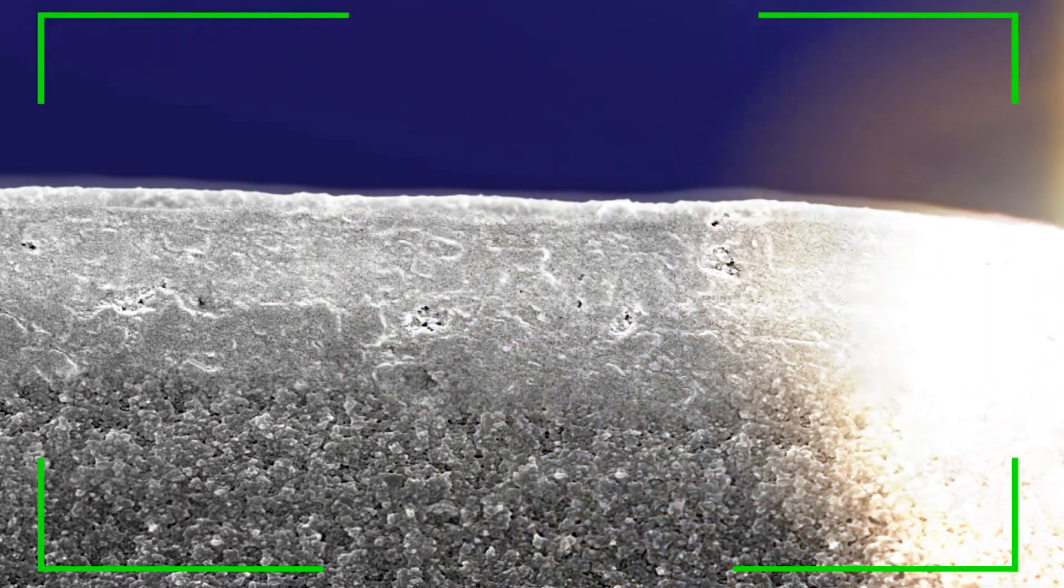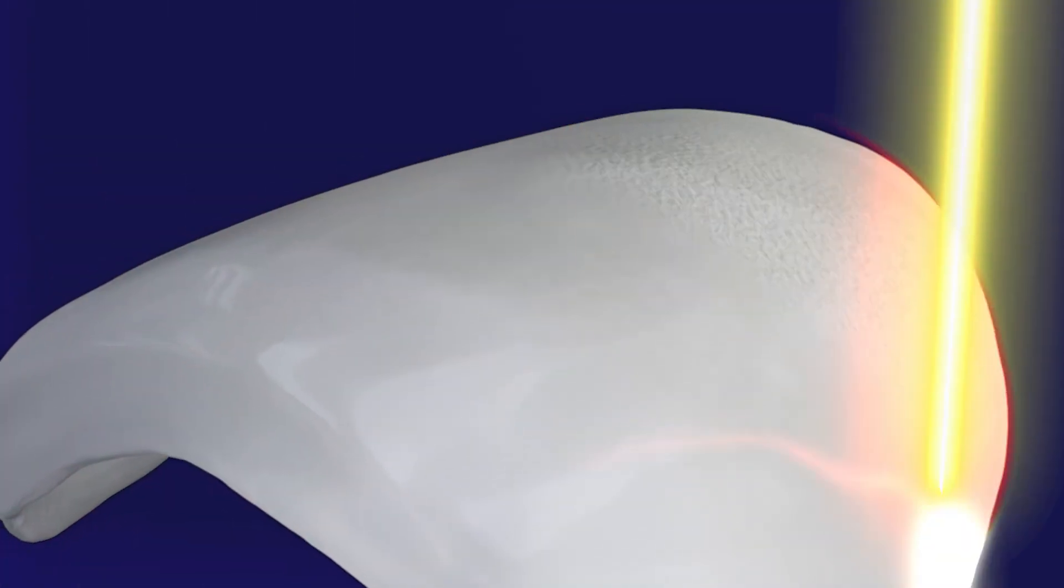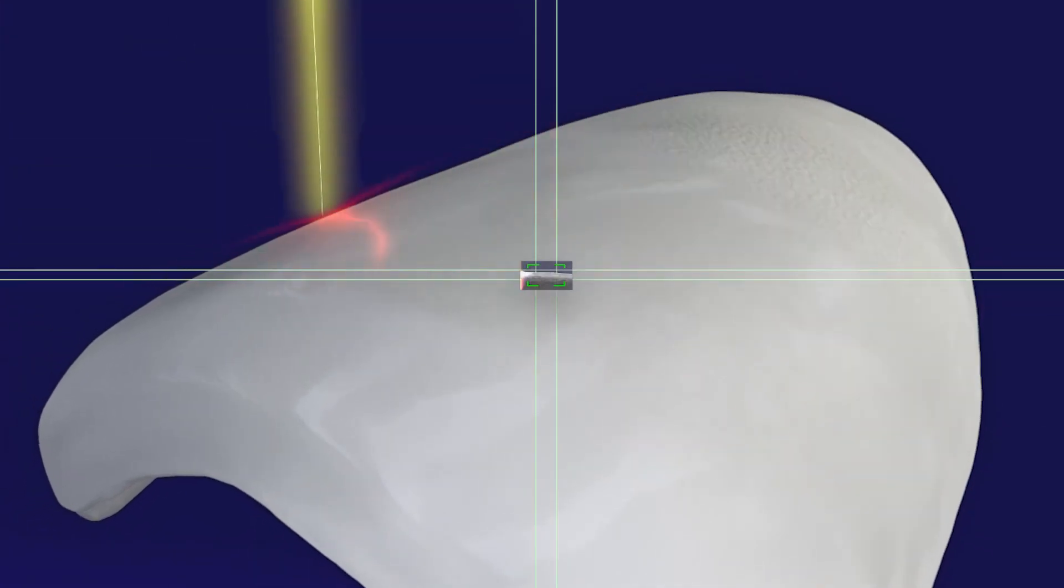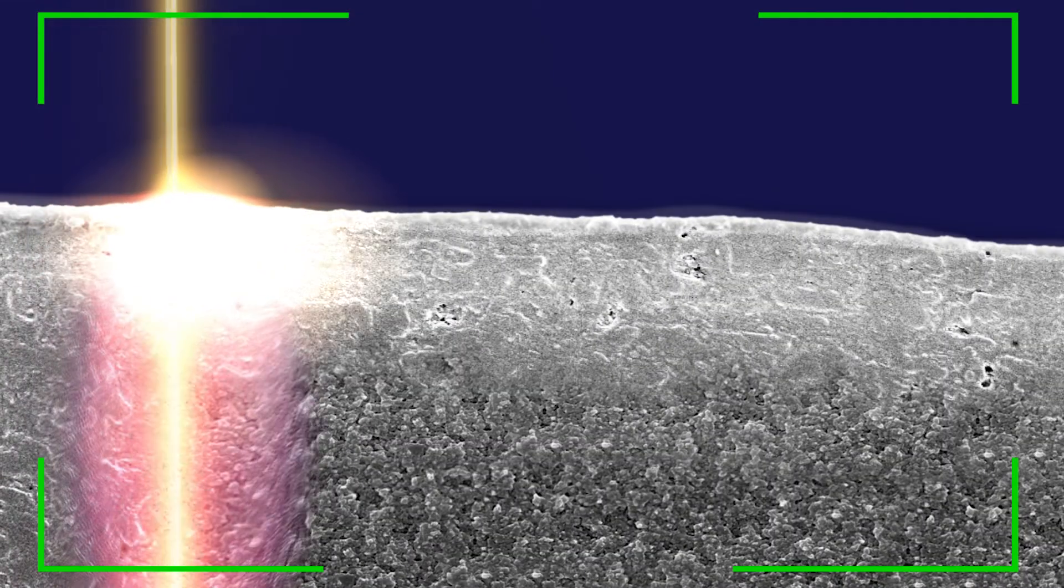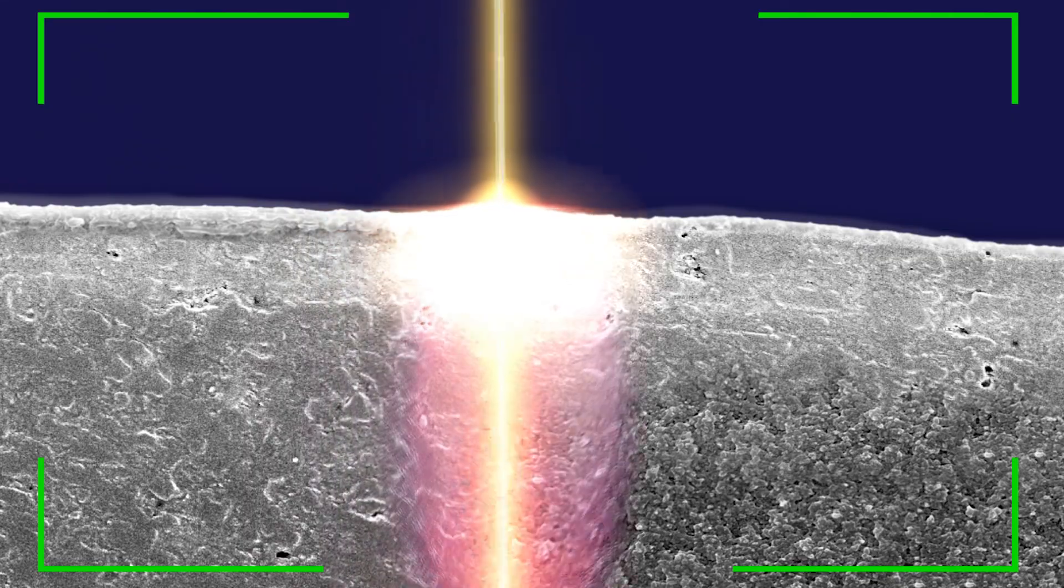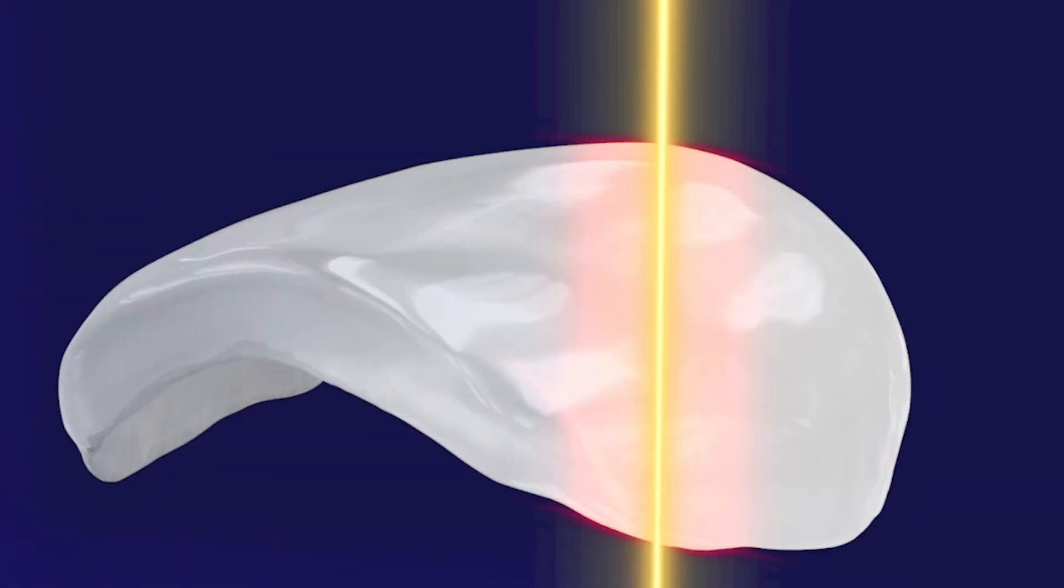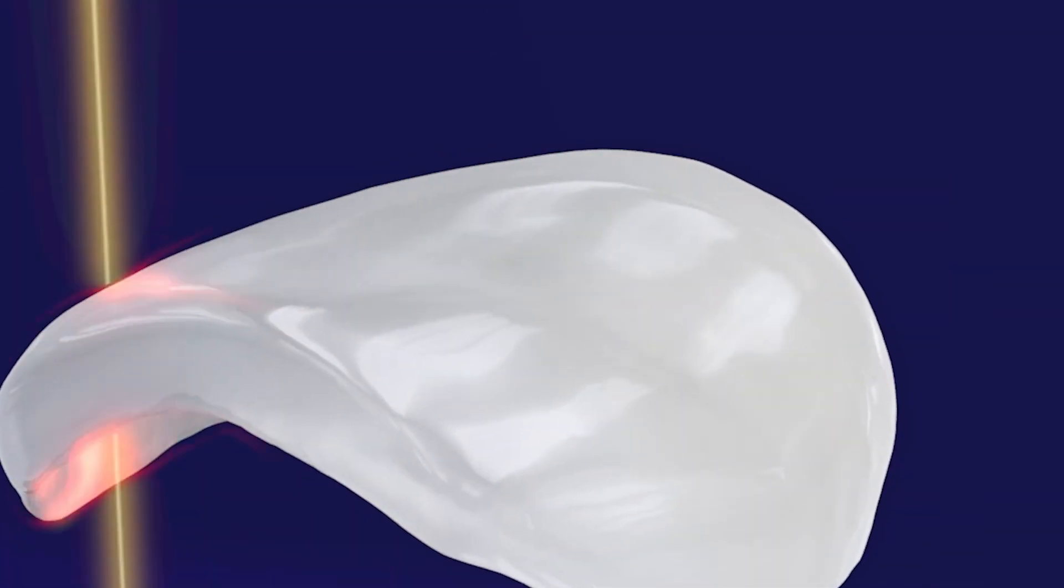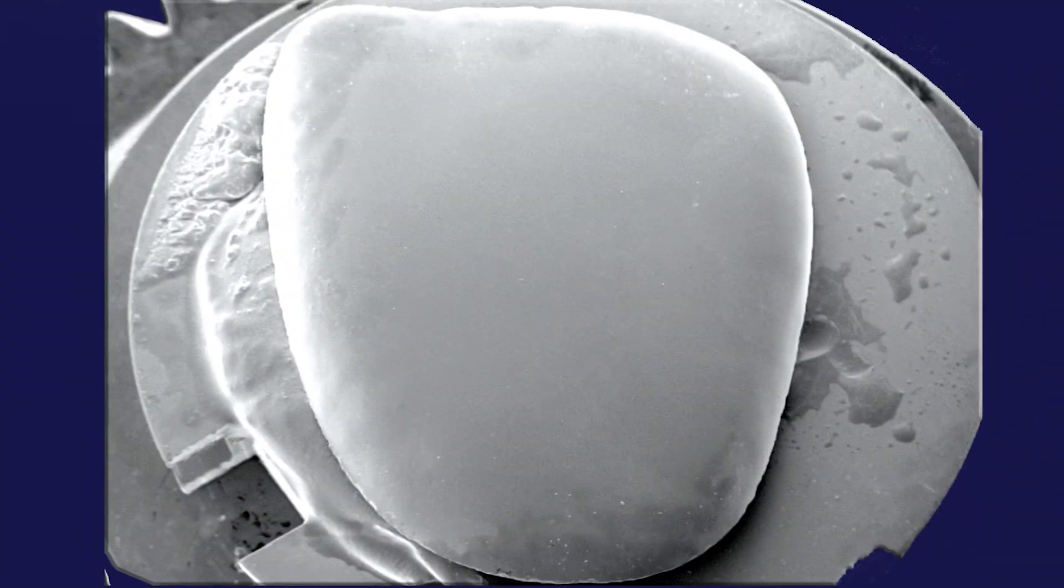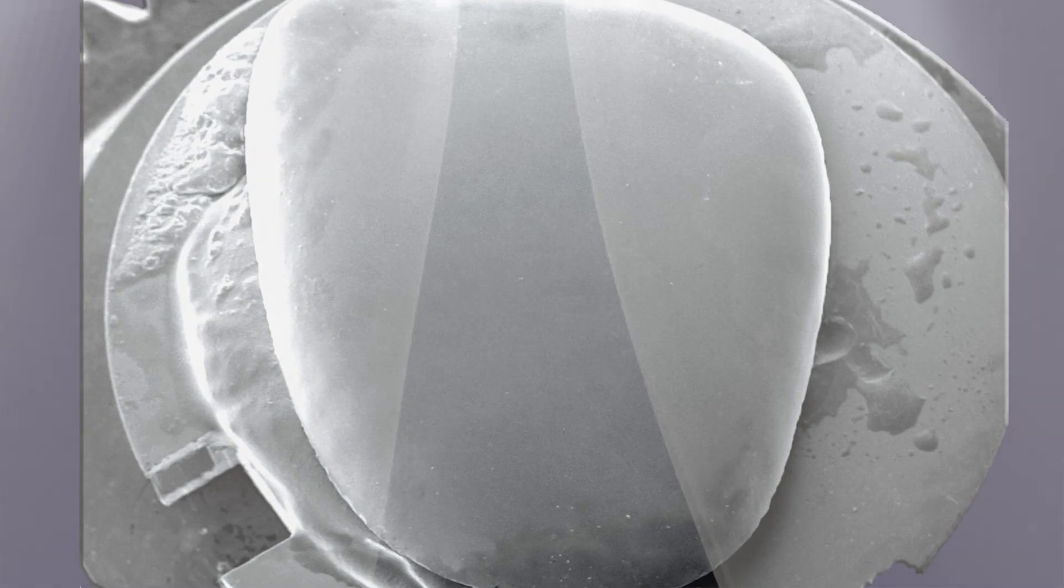Finishing is then done. The extracted resin portion is replaced by a dispersed vitrified layer of fine glass particles throughout the entire thickness of the material. The result is an inorganic high-gloss glass phase, fused with the sintered dynamic hybrid glass core material.